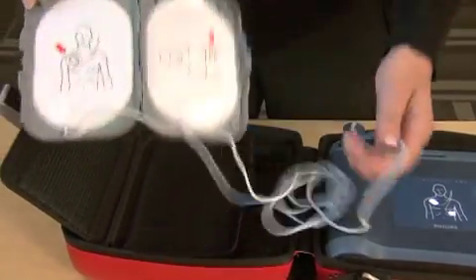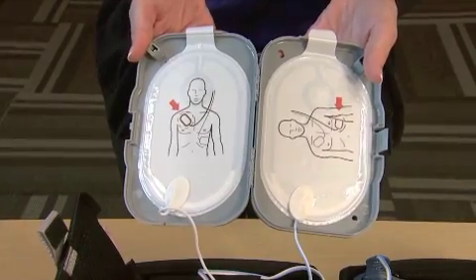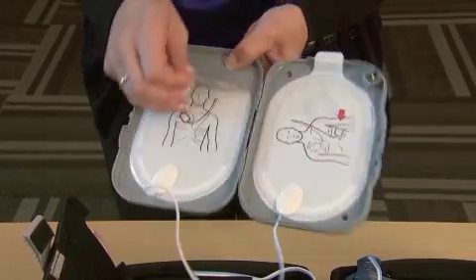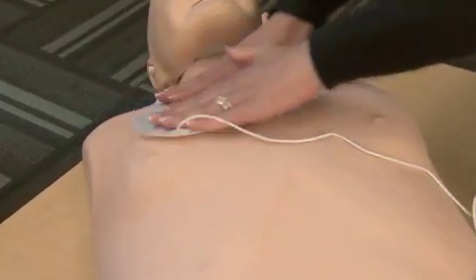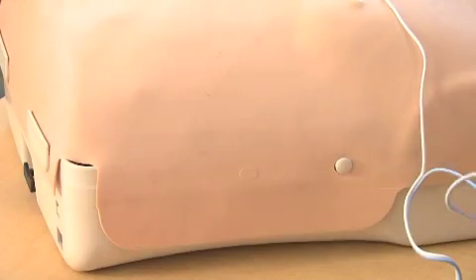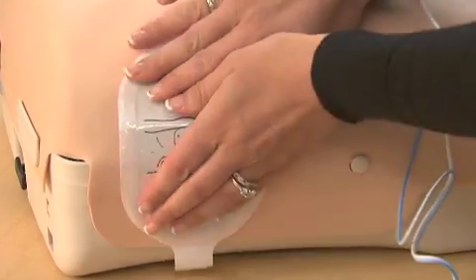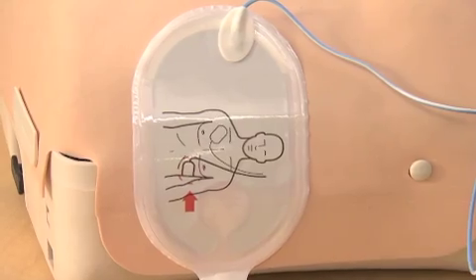Look carefully at the pictures on the white adhesive pads. Peel one white pad from the gray case. Place pad exactly as shown. Press firmly to bare skin. When the first pad is in place, peel the second pad. Place pad exactly as shown. Press firmly to bare skin.